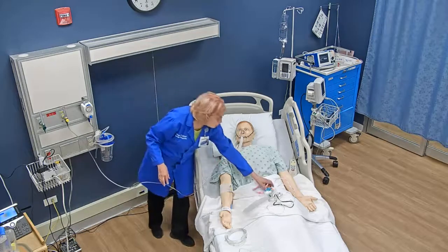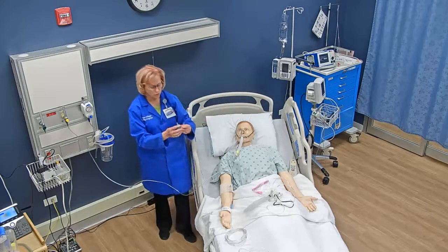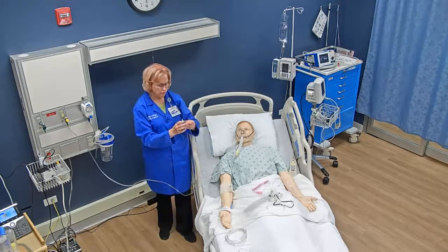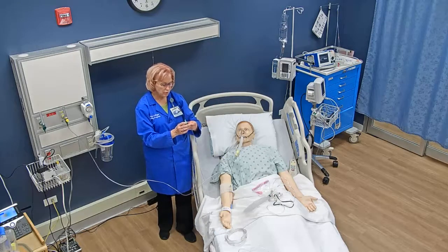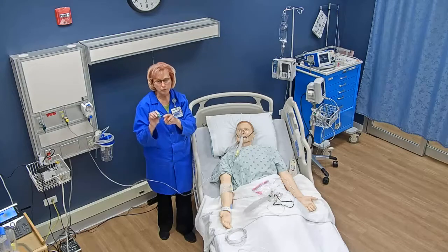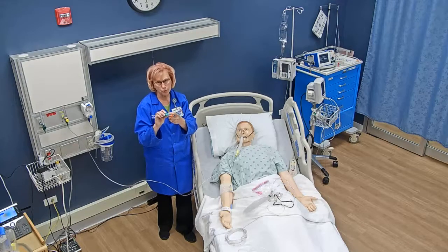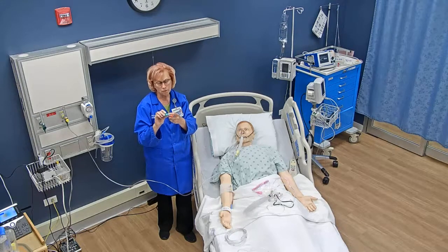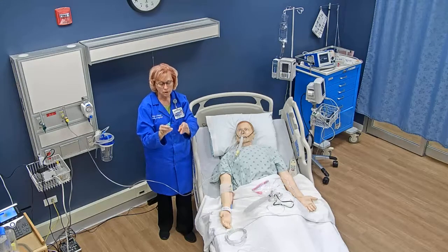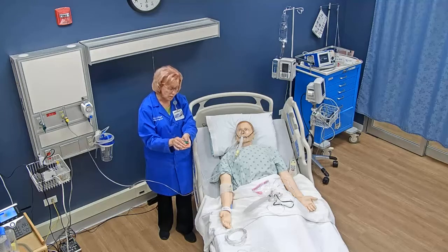If the doctor ordered a different percentage of oxygen — say 35% — I would find the right adapter that says 35% on it. The different adapters deliver different percents of oxygen.